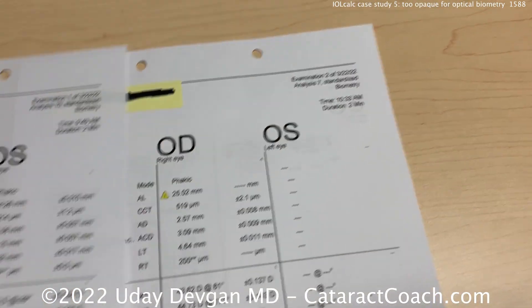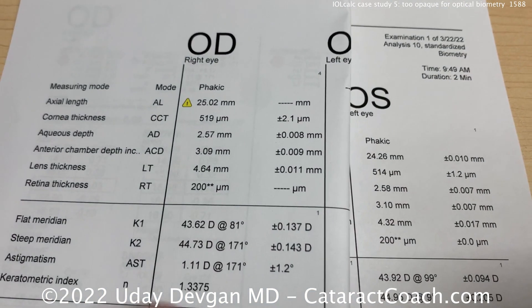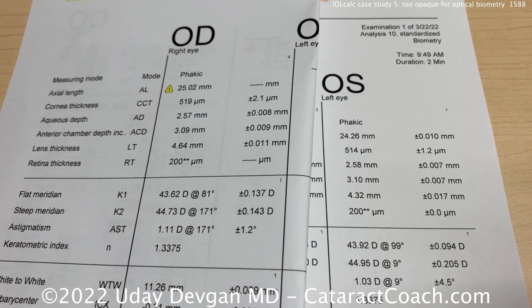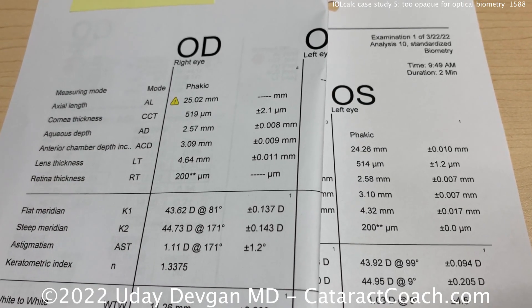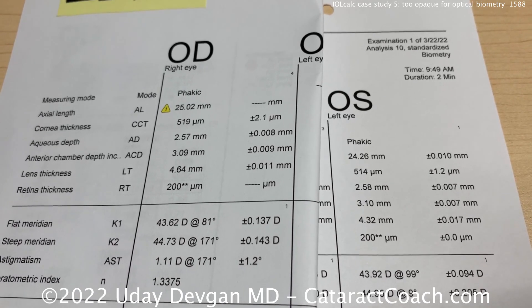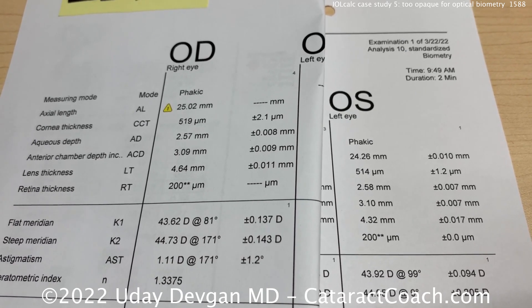Now you can look at before dilation and after dilation. On this side, you've got the right eye post-dilation; the left eye pre-dilation — and both are similar axial lengths, a little bit longer in this eye, but I'm pretty confident. So in a tough eye like this with a very dense cataract — especially with cortical spokes or posterior subcapsular in the center — dilate the patient and then repeat the biometry. You may be surprised.